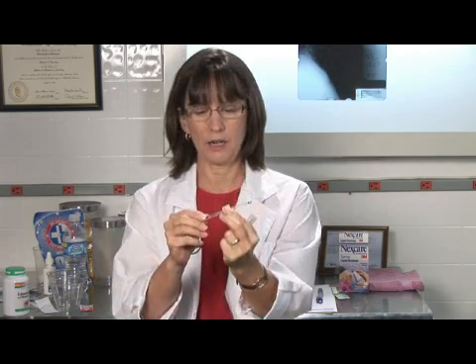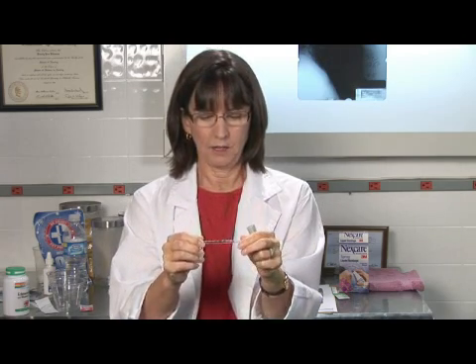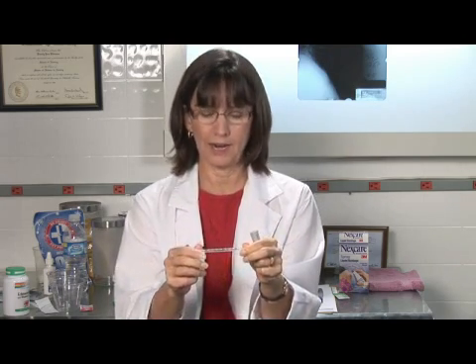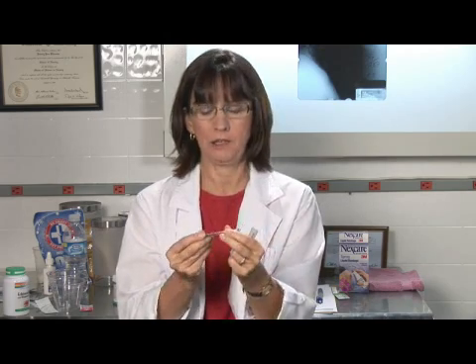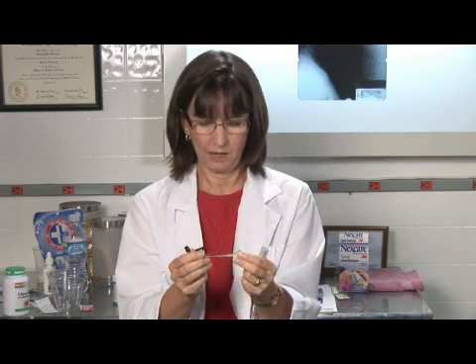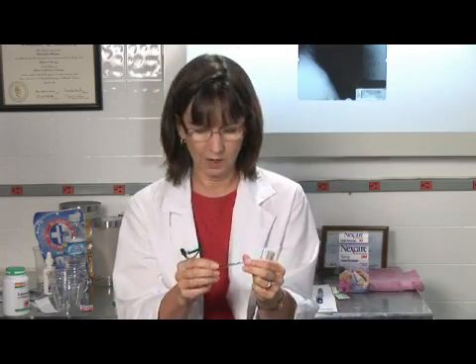You see here, it's about three or four inches long. The temperature can be read along the side of the thermometer, and it actually has mercury. The silver tip is filled with mercury. It's housed in this glass tube, so it's safe unless it breaks, and we'll talk about that in a minute.